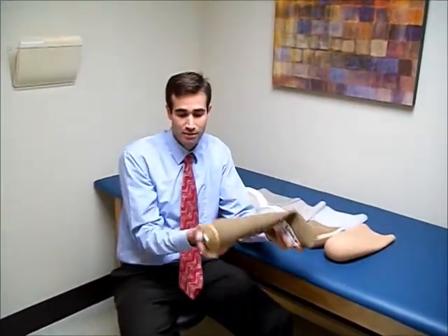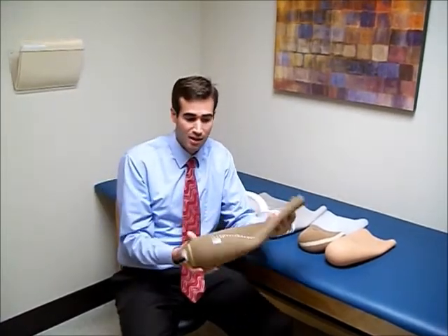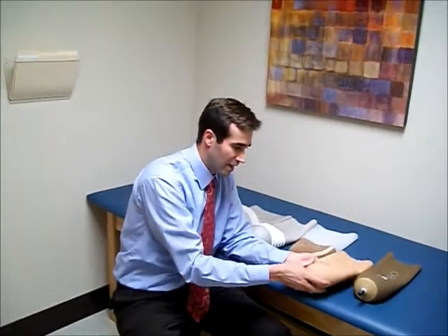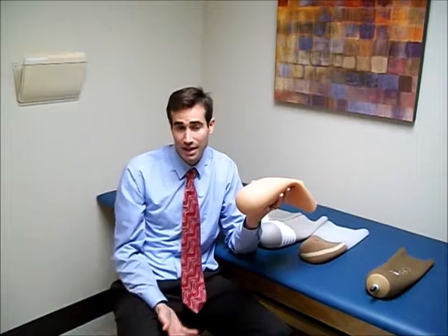There are generally two types of gel liners. One is the pin type — a liner that has a threaded area for a pin to be placed so that you can use a pin locking style prosthesis. This is an example of that.